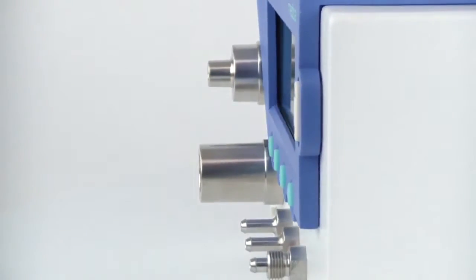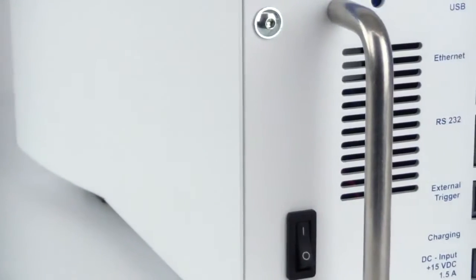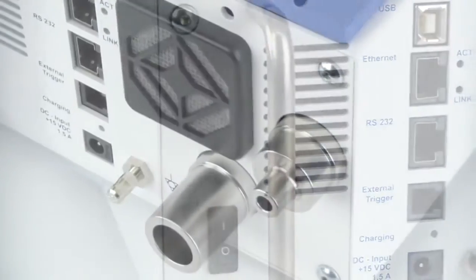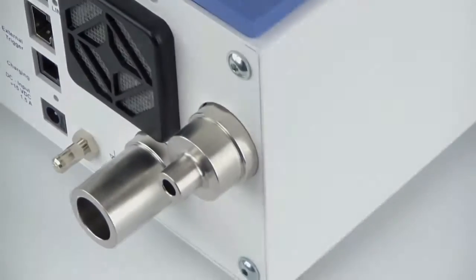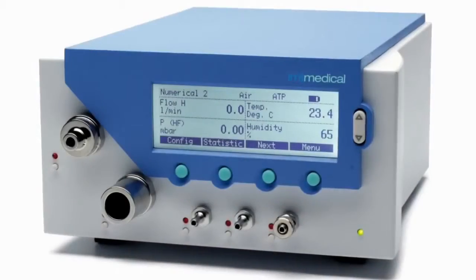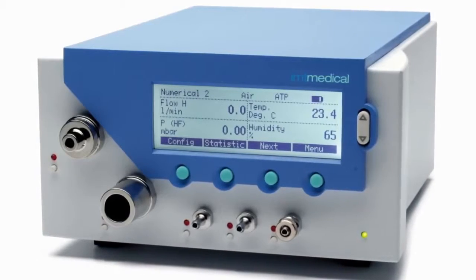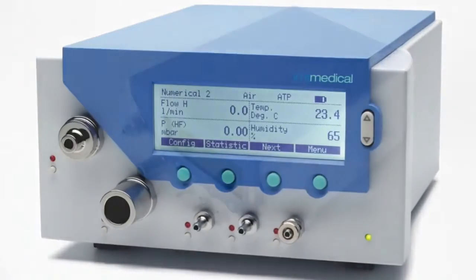The Swiss devotion to details is legendary, especially when it comes to precision. Designed to test any medical device that exerts pressure or produces flow, the flow analyzer is the benchtop tester of choice for healthcare quality biomedical engineers.